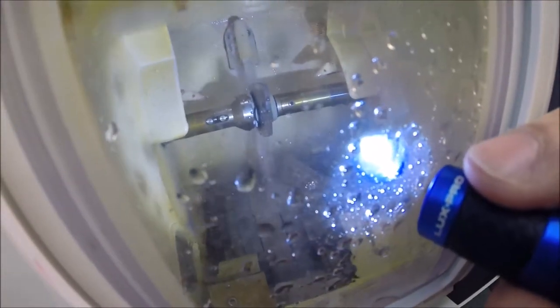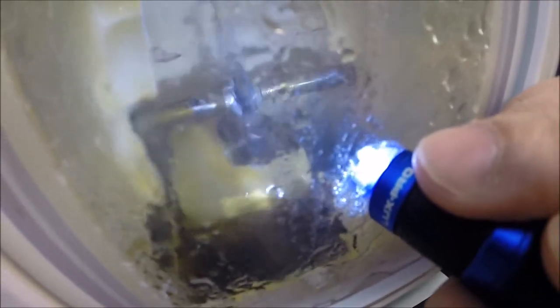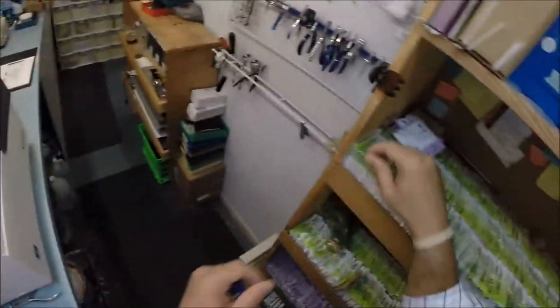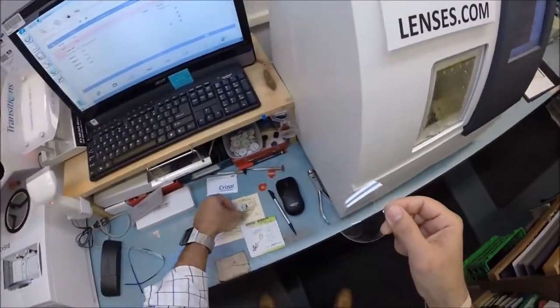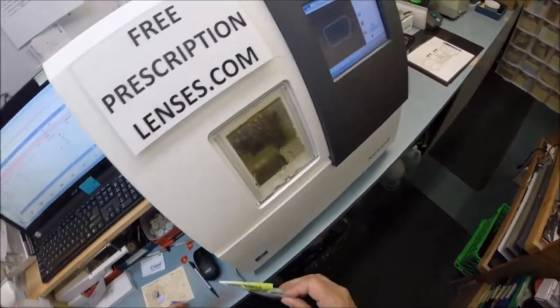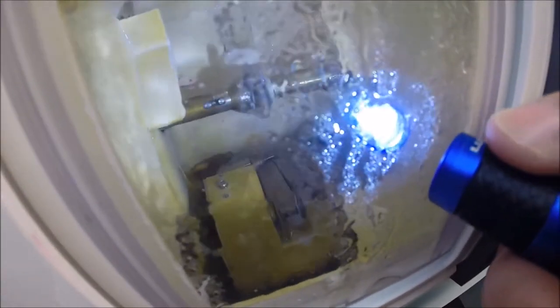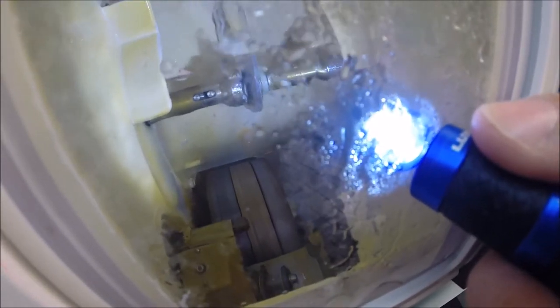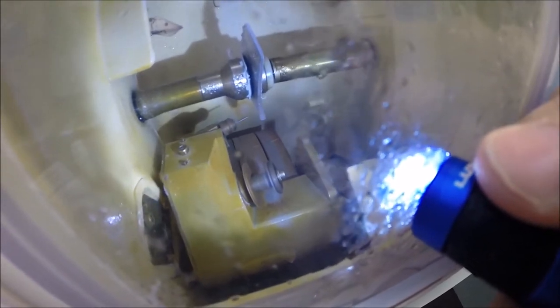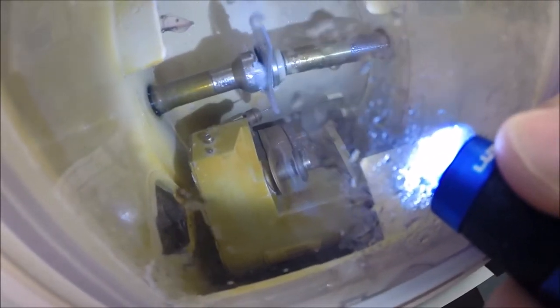Water is spraying onto the lens, which tells me it's almost done with the cutting cycle. That lever is coming out — it's going to apply the safety bevel, taking away any sharp edges from the front of the lens and then doing the same on the back. Anti-glare has three features in one: it eliminates glare when driving at night, particularly in rain, from street lights, stop lights, computer screens, and overhead lights. It's also a reflection-free lens so when someone's looking at you they see just your eyes — makes for much better eye contact. Plus if someone takes a picture with a flash, you don't see the flash lit up in the lens. The machine that applies the anti-glare coating costs well over a million dollars and takes over 24 hours to vaporize seven different coatings onto the lens. Because of the time and investment, they put the hardest scratch coating possible on the lens.